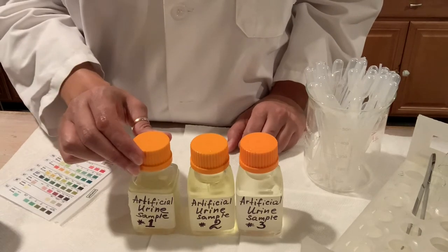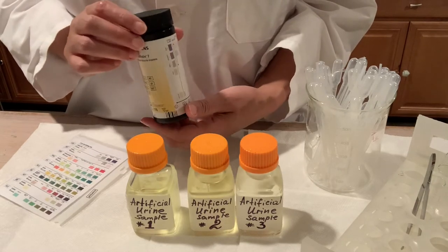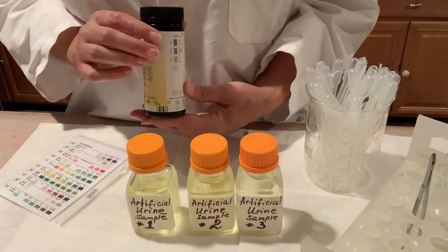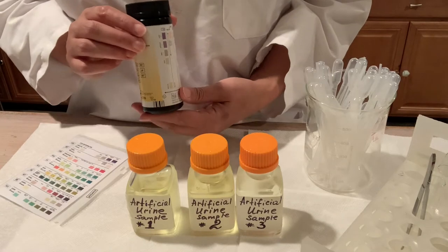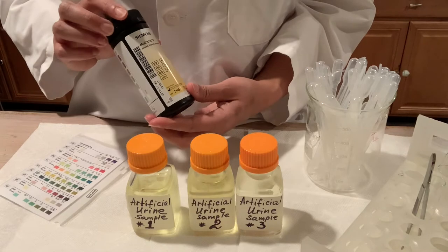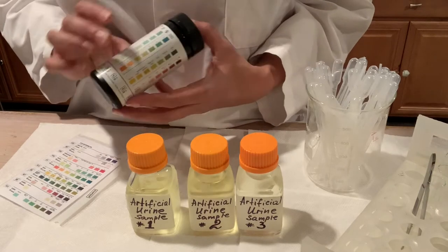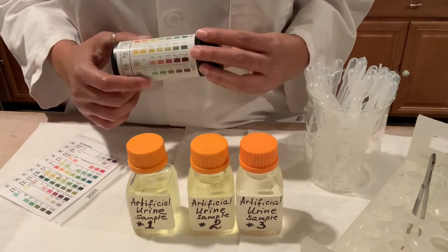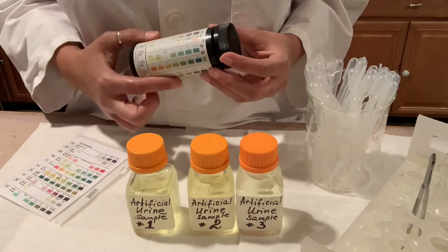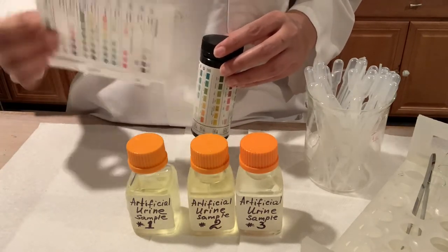This test is going to be performed using what we call test strips. These can be found many times over the counter and will test for different drugs, urine components, or parameters. This one is testing for seven different things — on one strip you have actually seven different tests. Here we have a color chart that will help us get the results, and the same chart has been printed in a flat version so it's easier to look at.